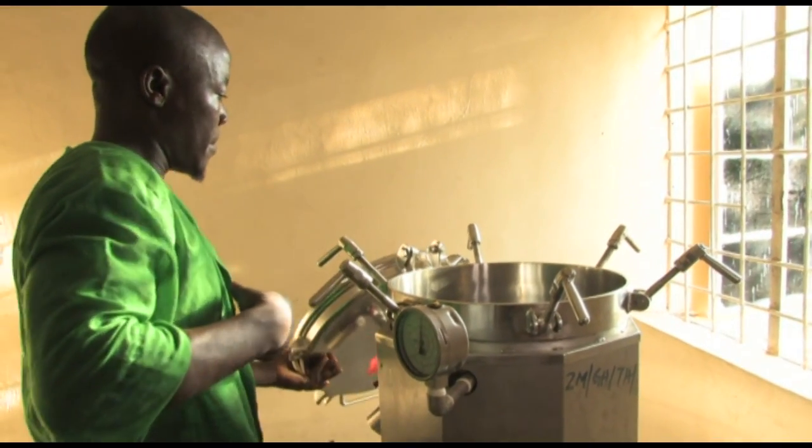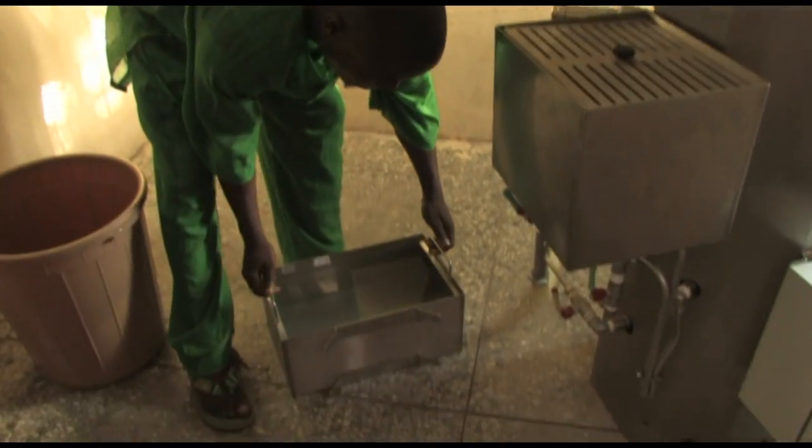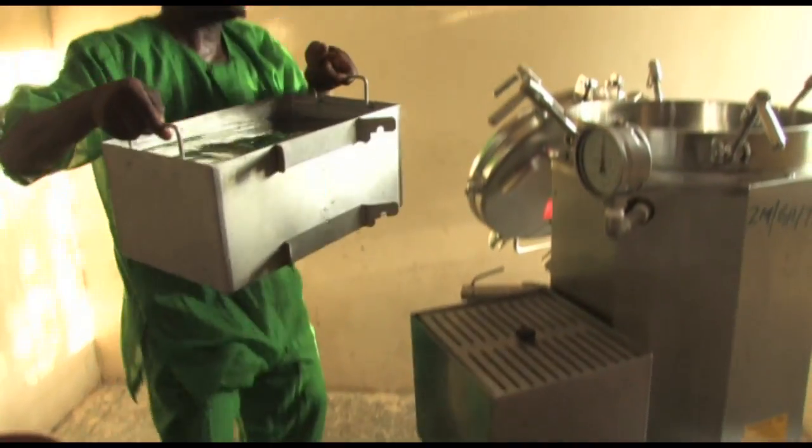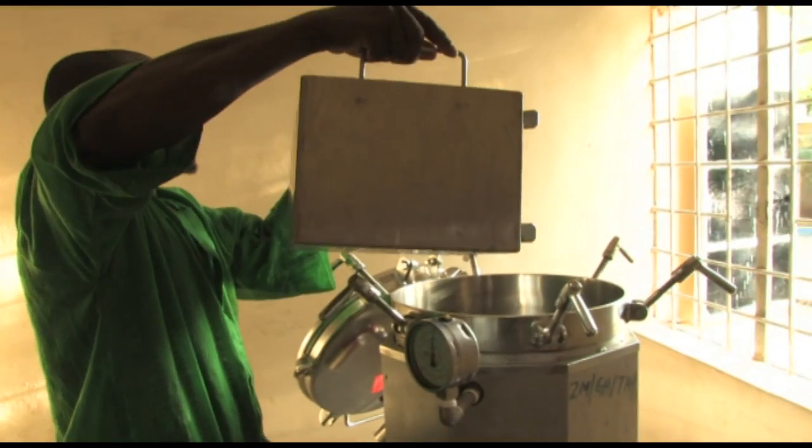Open the lid and pour the correct amount of clean water into the chamber. Refer to the instruction manual on optimising the quality of the water for the steriliser.